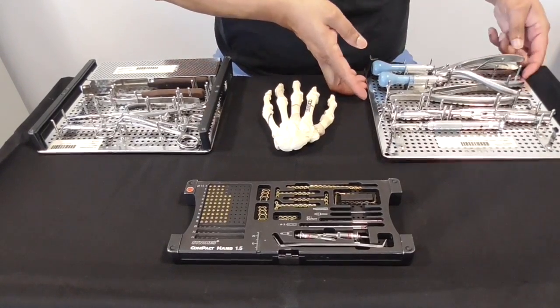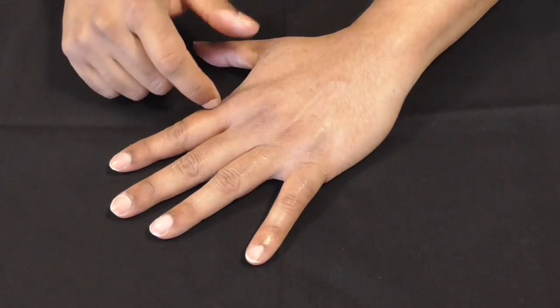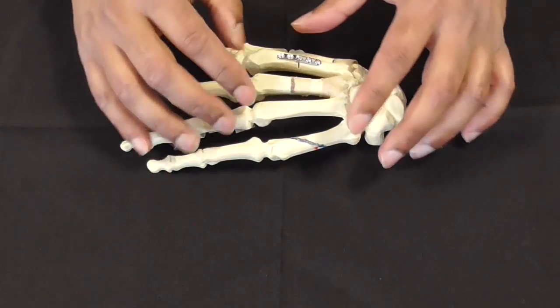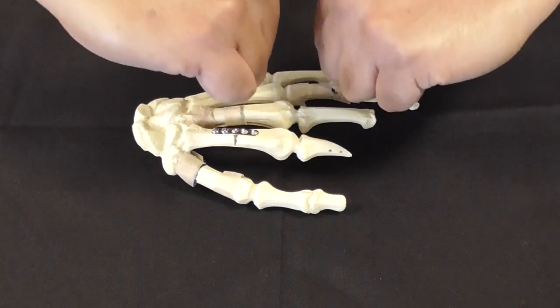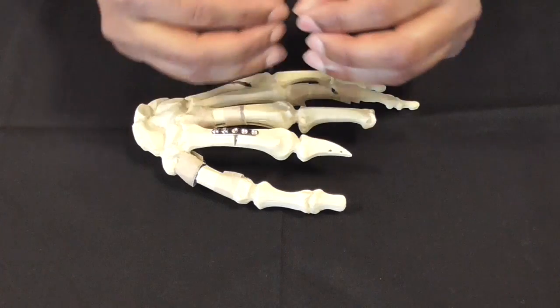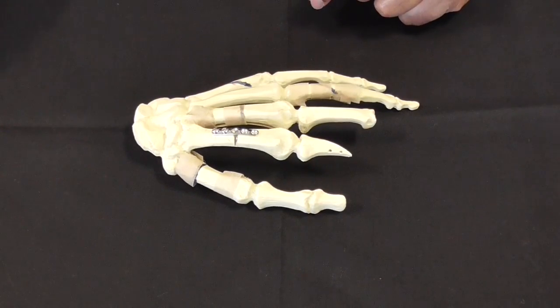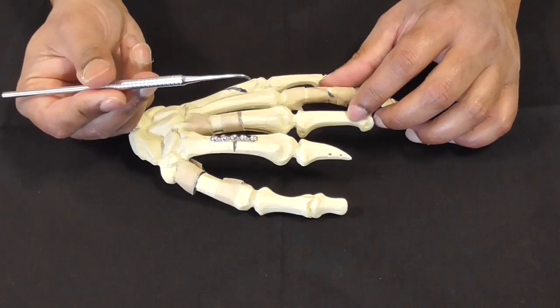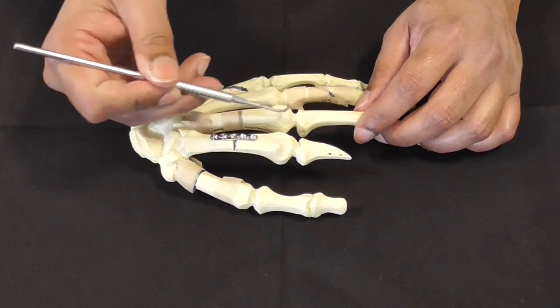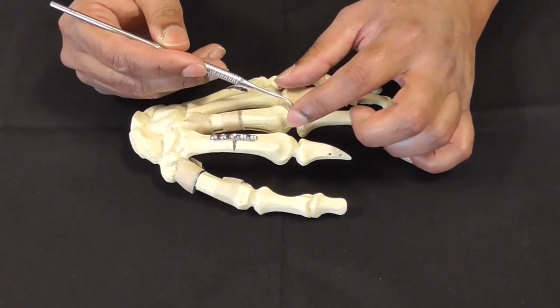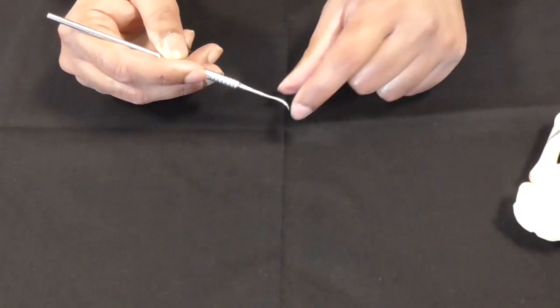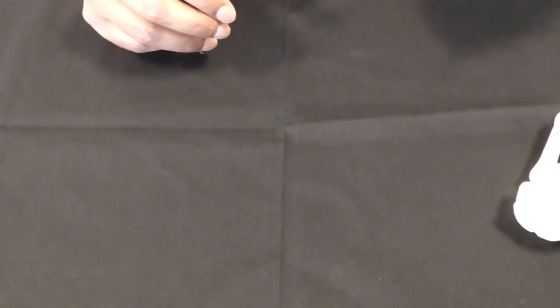So you've got a hand and you've made your incision. Let's assume the fracture fragments may not be aligned and there's a bit of hematoma in between. The first instrument is a little pick, and the pick is usually to take away little bits of hematoma and soft tissue between the fragments. It's got a pointy tip as you can see, and that's quite a useful thing, the pick.